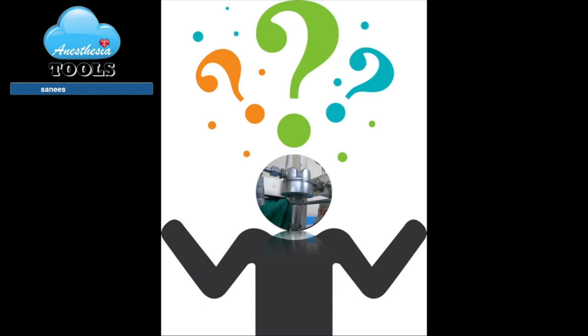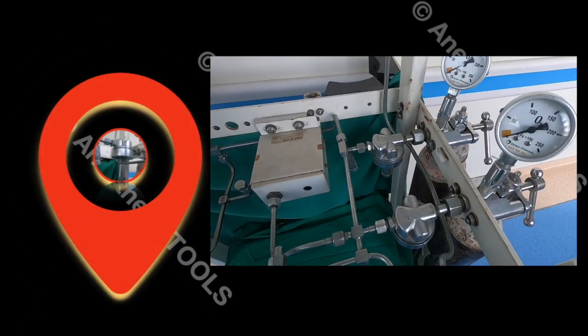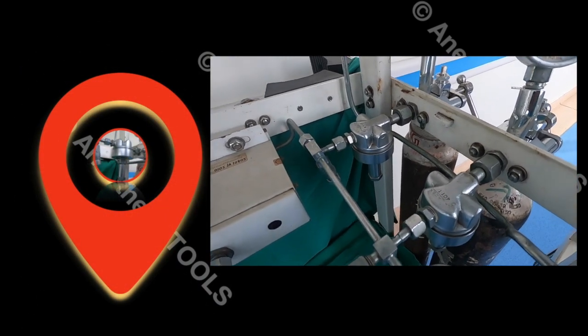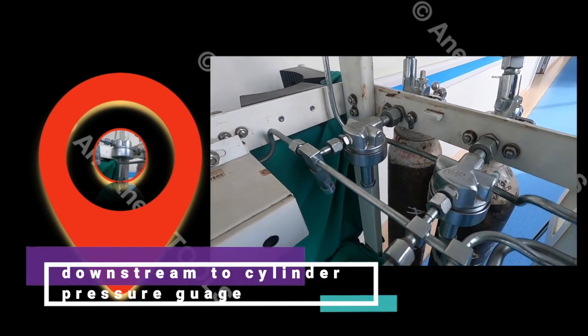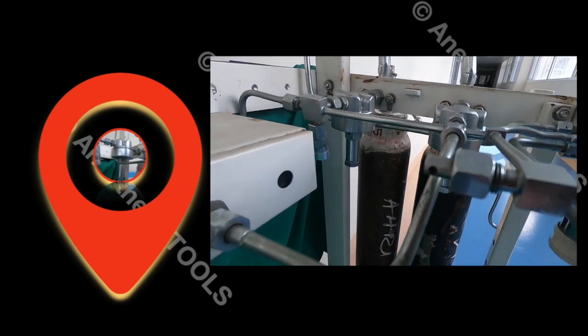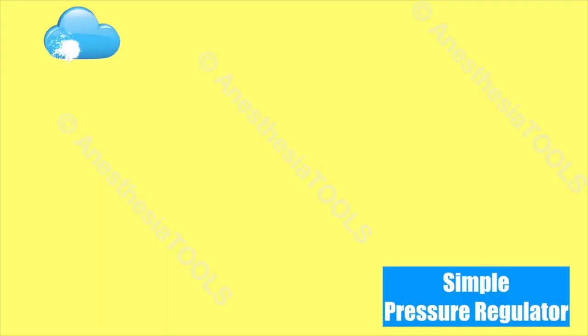What is a pressure regulator? Pressure regulators, or pressure reducing valves, reduce high and variable pressure from the cylinder to a more constant lower pressure suitable for use in the anesthesia machine. Where is the pressure regulator located? The pressure regulator is part of the high pressure system, located downstream to the cylinder.